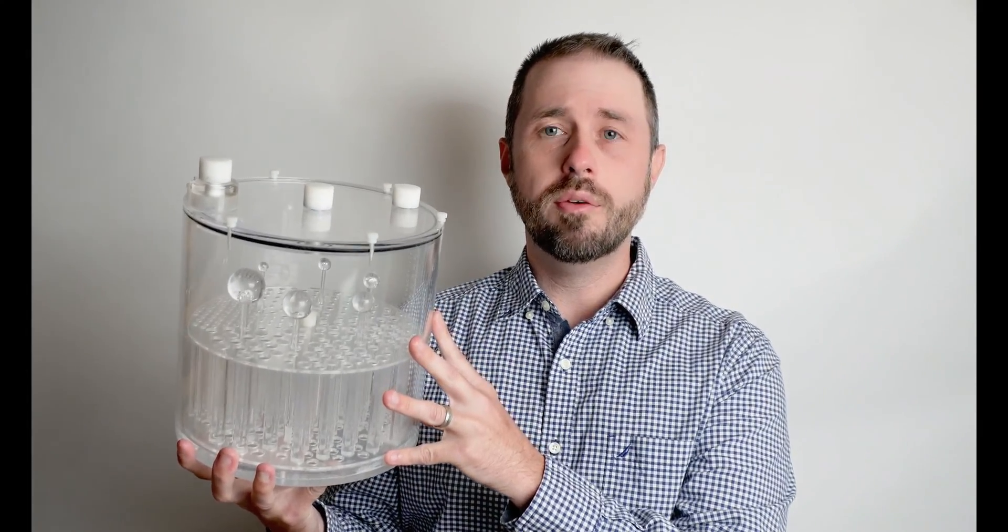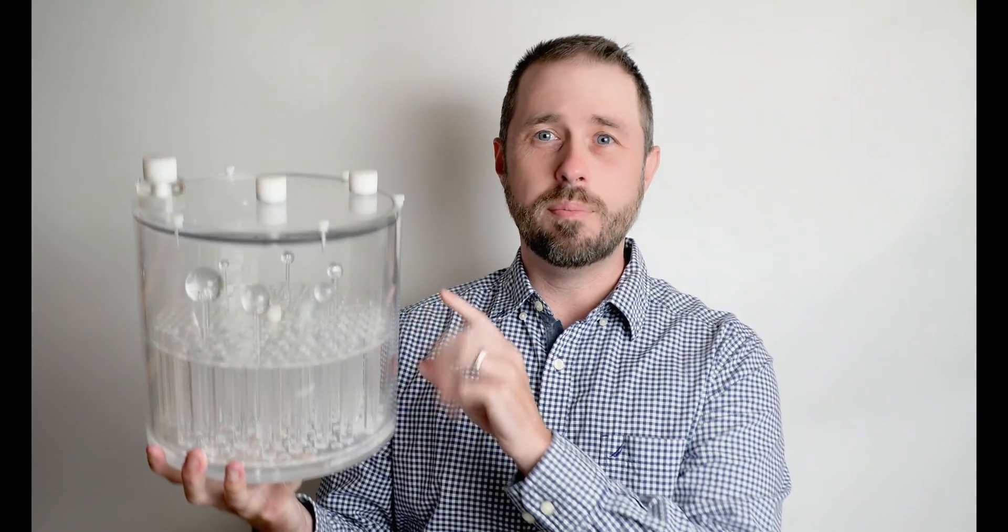This video here we're just going to be talking about the large Phantom. So this Phantom, we'll end up filling it with water, and I will show you how to set this up with arranging the rods and the spheres. The water that we add here, we add water because that's going to be a good mimicker for tissue.